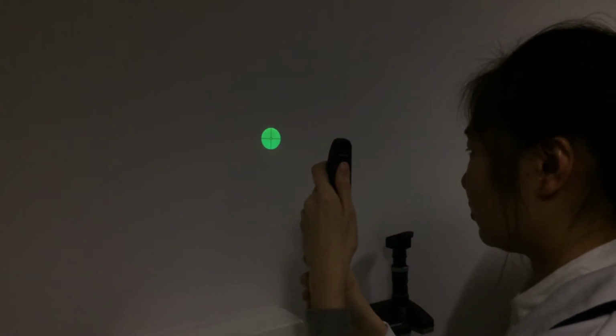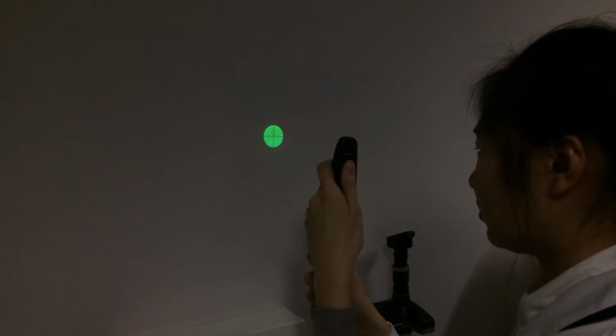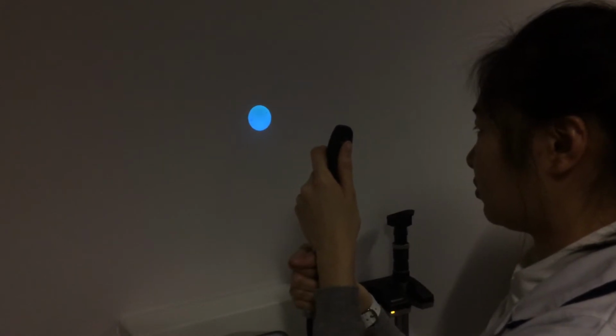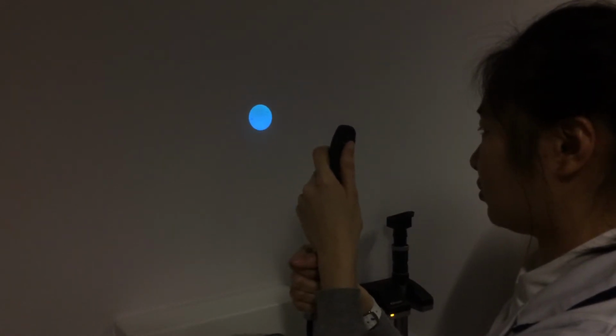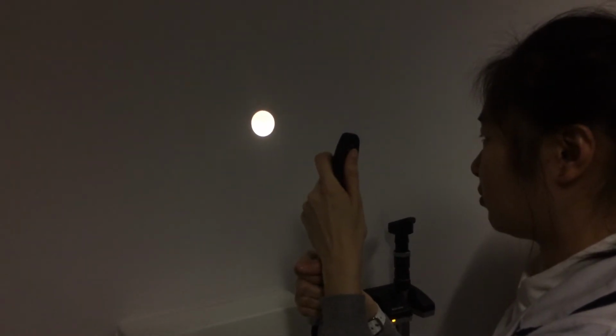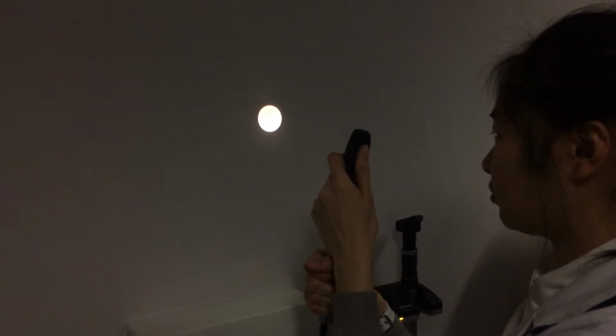They appear dark against the light background of the fundus and therefore can be useful when assessing patients with diabetes or other vascular diseases. Cobalt blue filter can be used with fluorescein dye to view small lesions, abrasions or foreign objects on the cornea. Some ophthalmoscopes have a polarizing filter and a half-circle aperture. These are often available to decrease annoying reflections from the corneal surface.